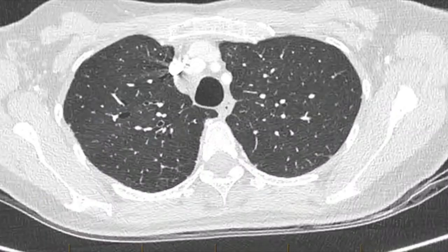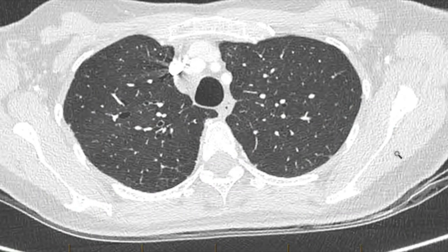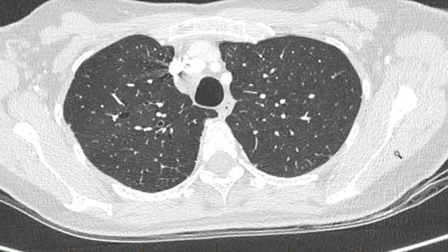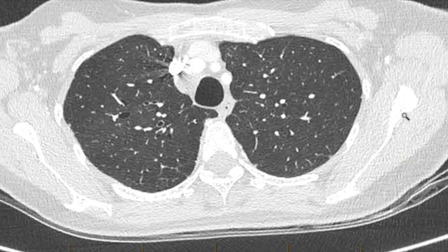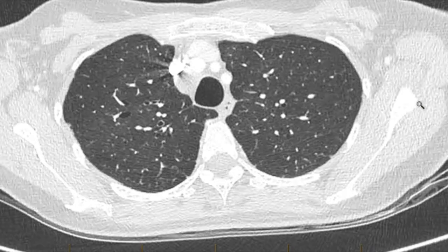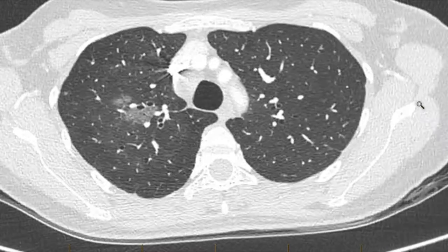Hi, it's Martin Williams here from Lung and Sleep. I've got an interesting case here to share with you. Here's a CT scan of a 52-year-old lady who unfortunately was found to have a right-side lung mass after presenting with cough.